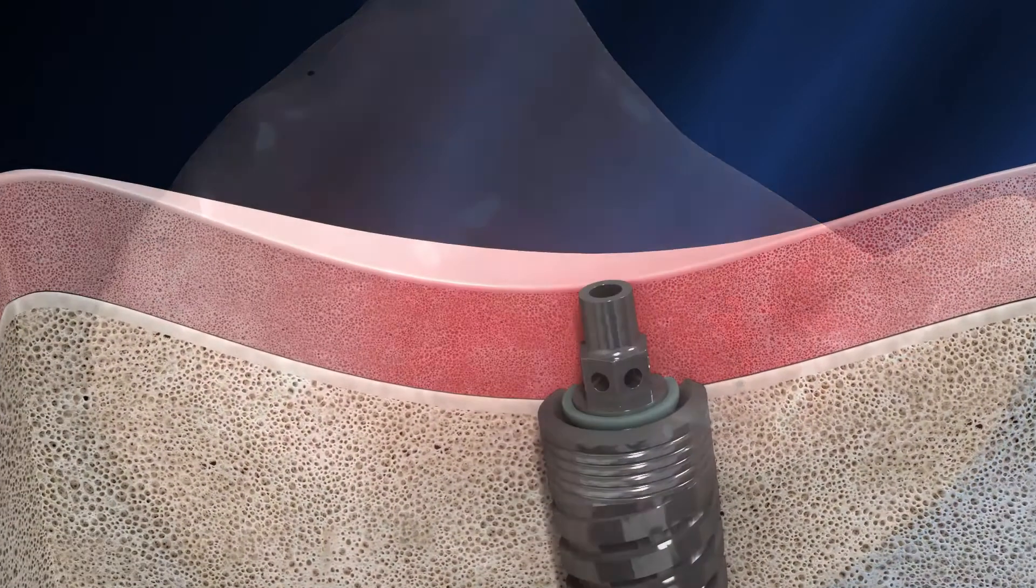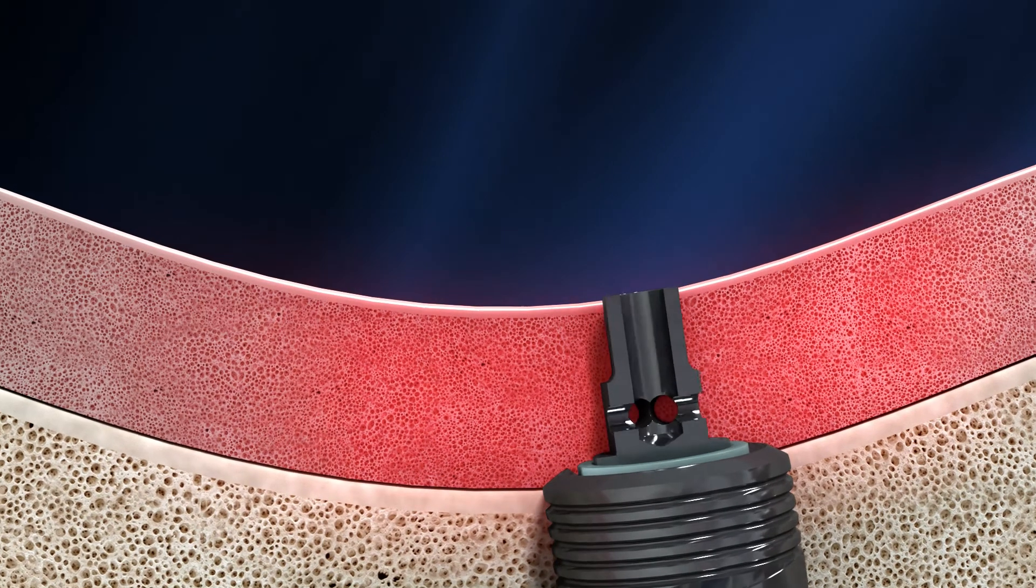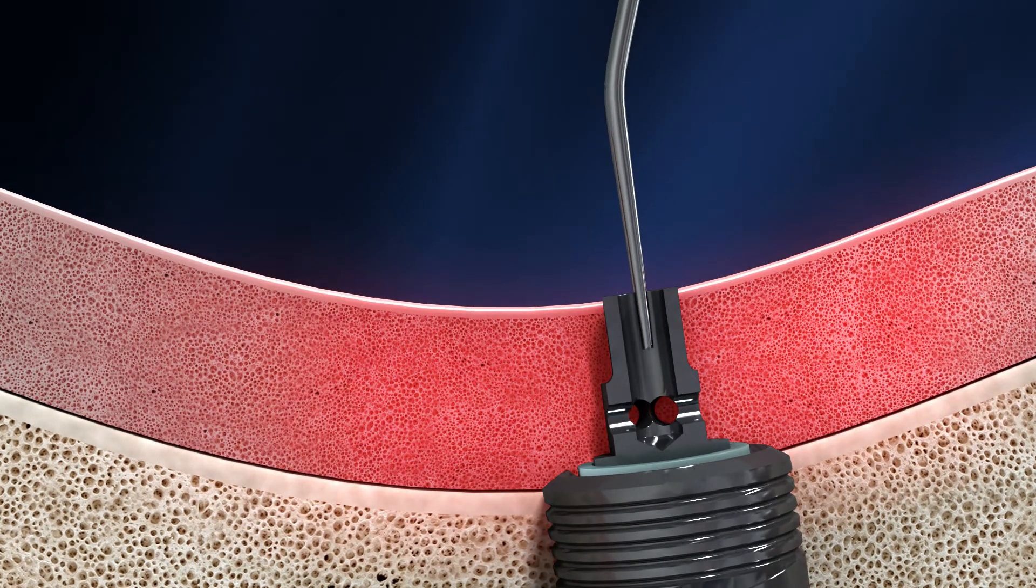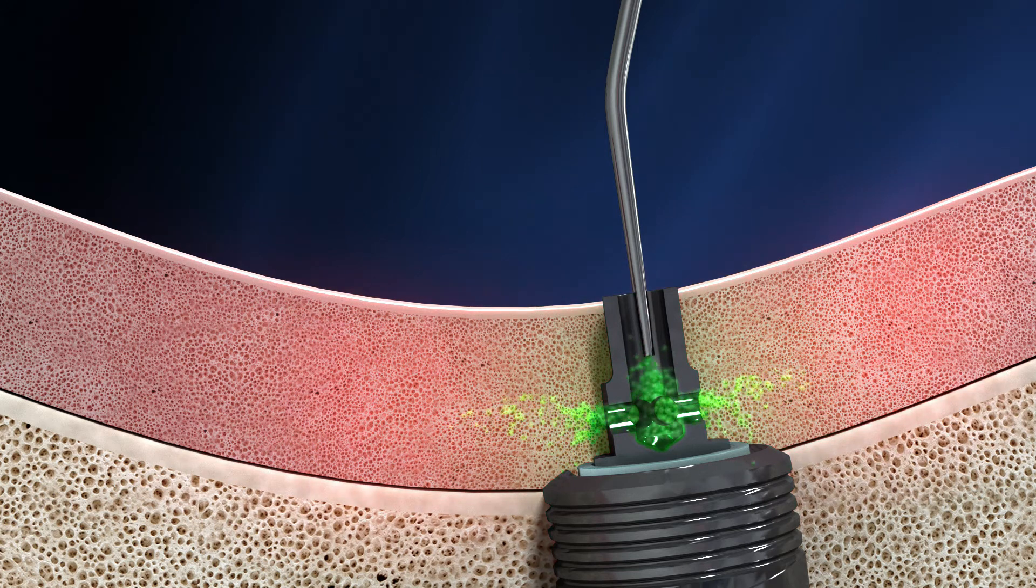During the healing period, the irrigation tunnel allows for easy maintenance of the host tissue, providing a comfortable opening for irrigation with antiseptic solutions.